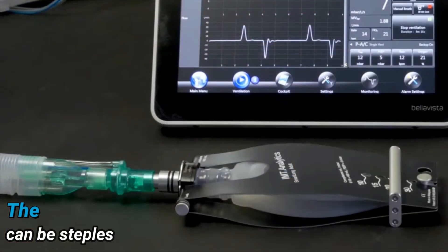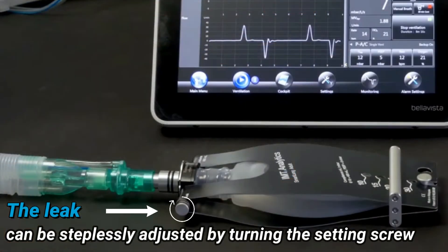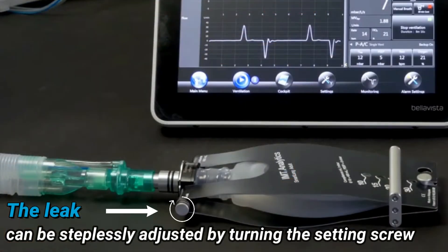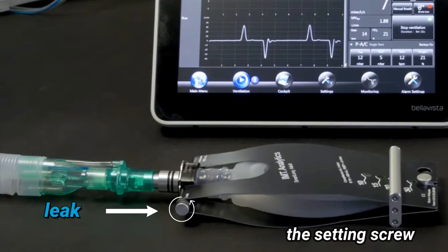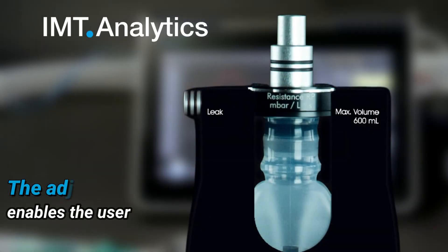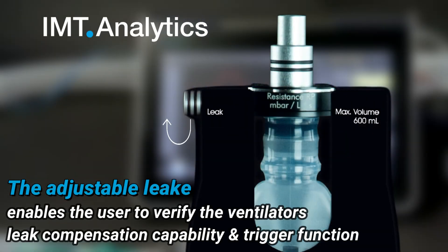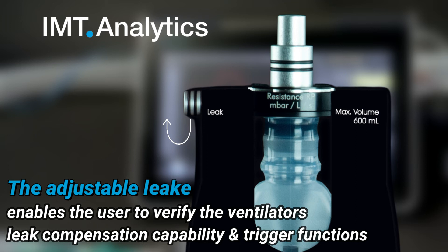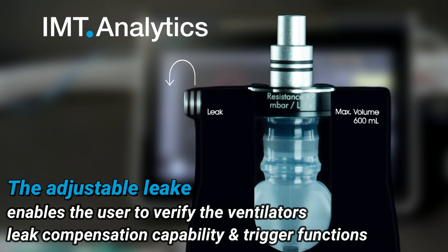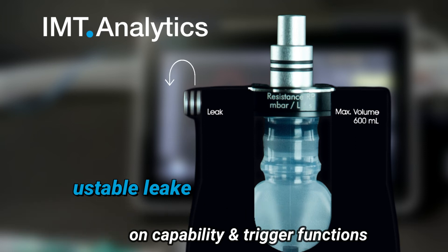The leak can be steplessly adjusted by turning the setting screw. The adjustable leak enables the user to verify the ventilator's leak compensation capability and trigger functions.